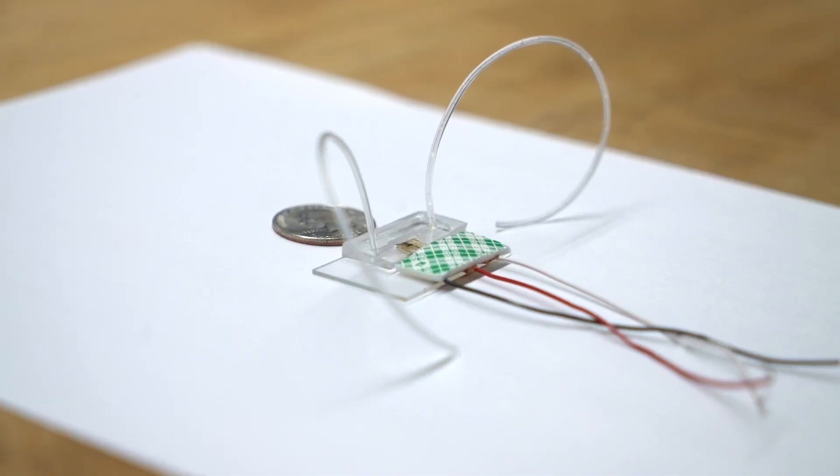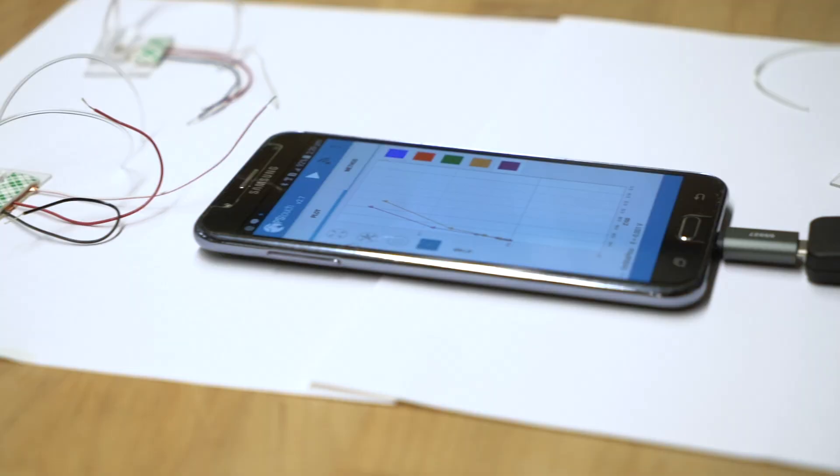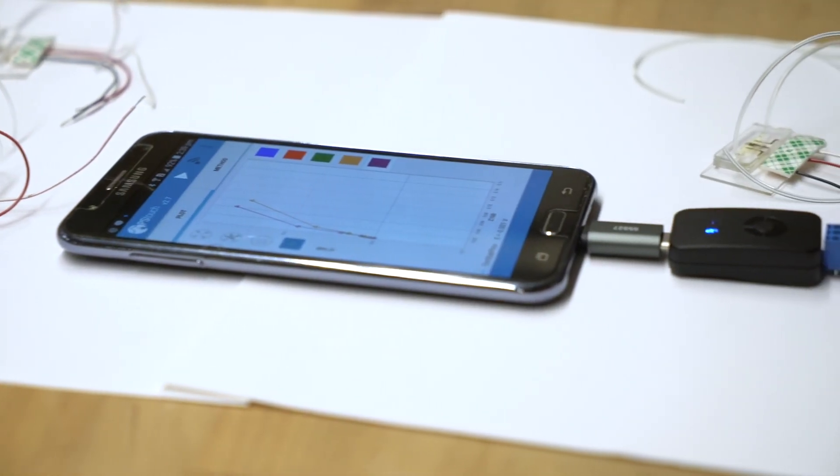The device is the size of a US quarter and is connected to a smartphone platform for easy and convenient readout.